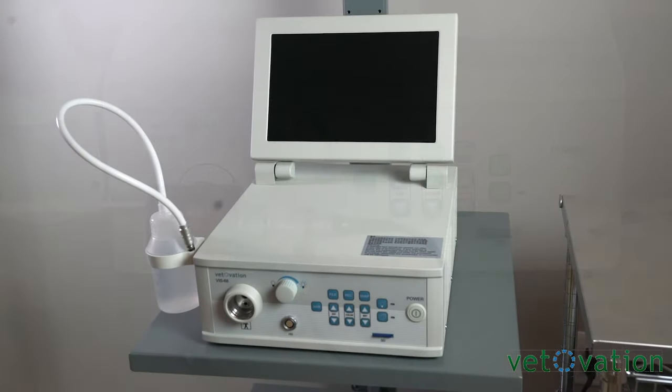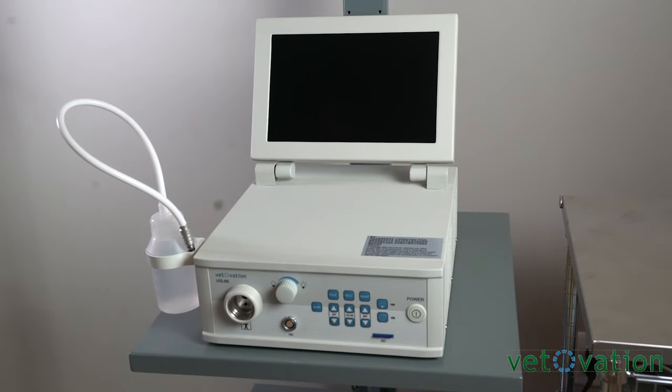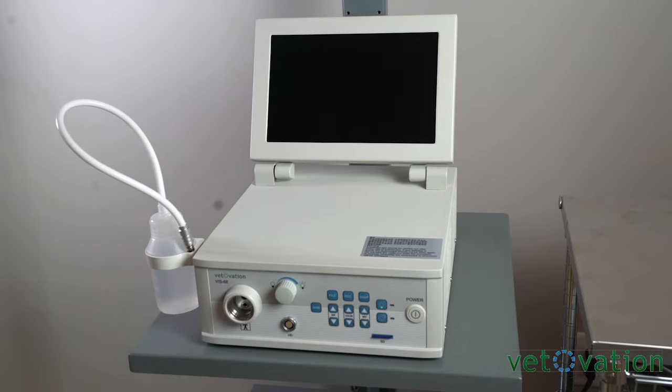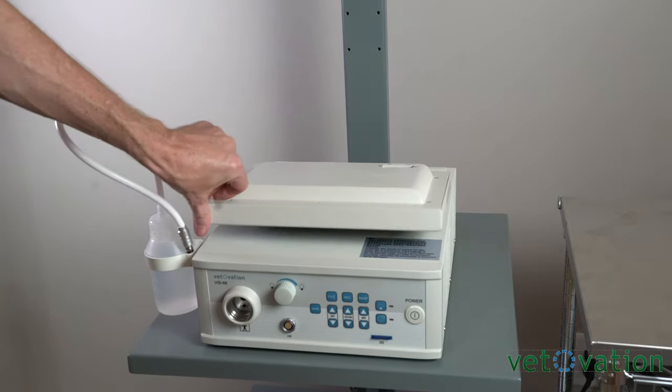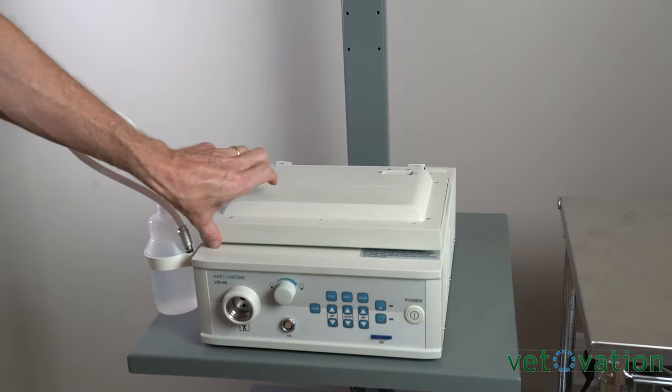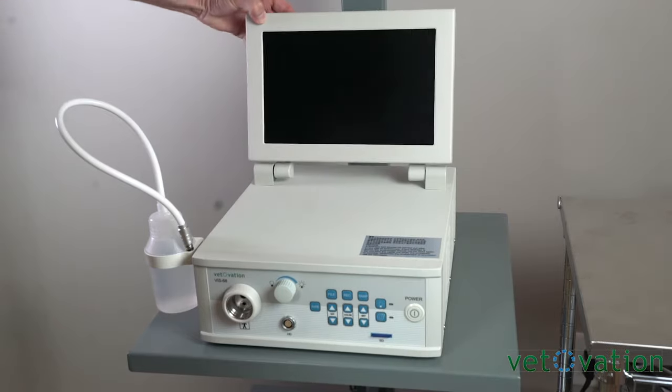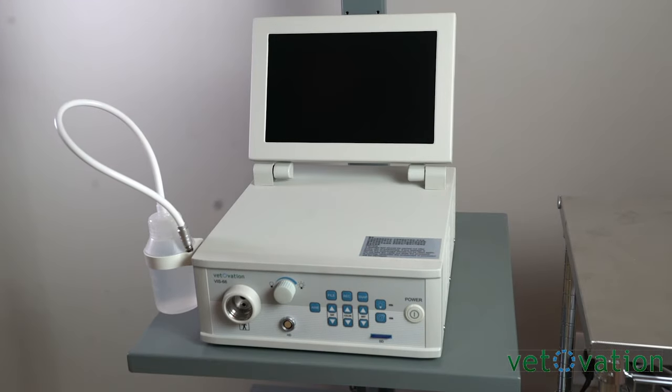Many mobile practices or practices that have space limitations like the processor to come with a monitor attached to it. The monitor is a flip-top monitor so when not in use it can easily rotate down. All of the other functionality is the same within the other gastroscope.